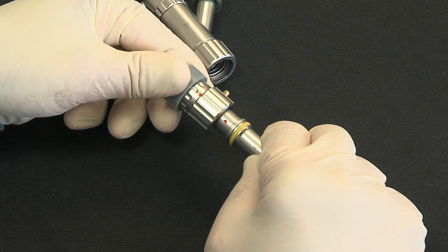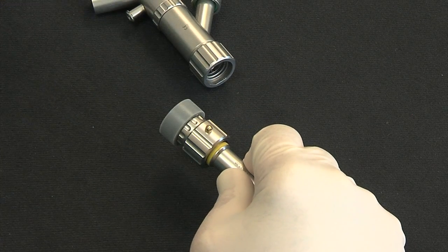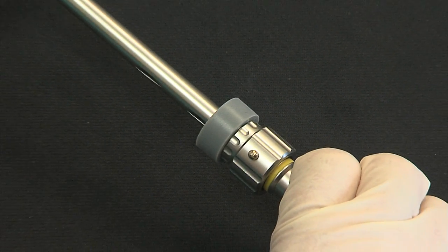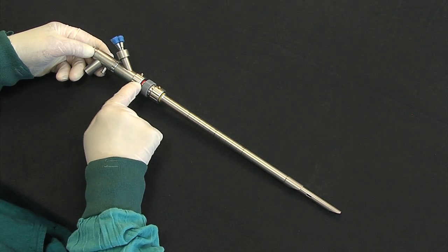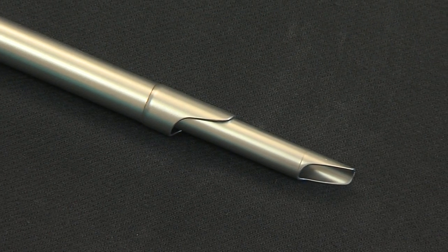The modular design permits Medlock connection to a large diameter tracheal tube. Fitted with a silicone cap, different diameter bronchial tubes can be inserted through the connection. This design allows intubating the patient once with a large yellow tracheal tube and then using different bronchial tubes without extubating or re-intubating the patient.